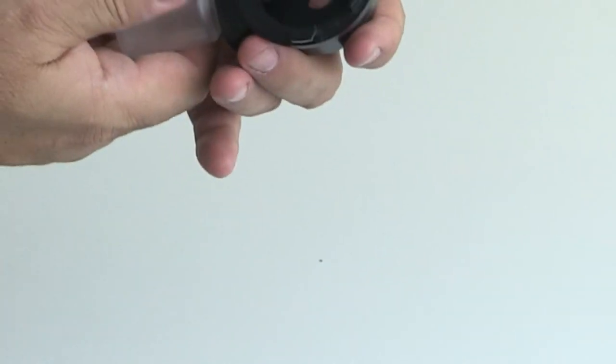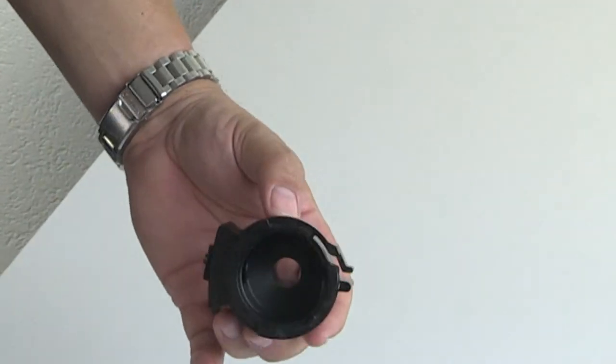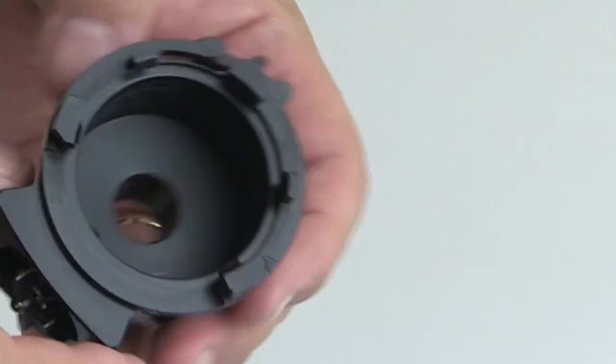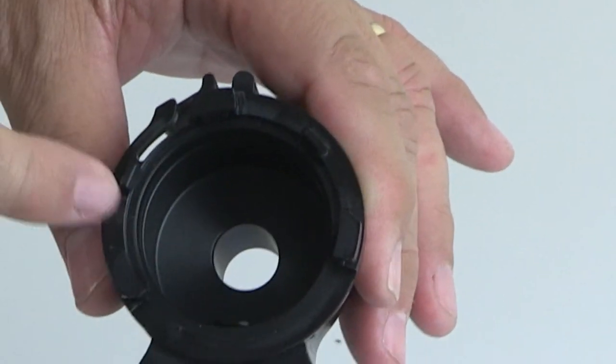Once you've done that, you can then remove the water collection vial, and now you have disassembled your exhalation valve for cleaning. It's important to note that in this valve you might have secretions and dirt in this part, so thoroughly wash this part in liquid.